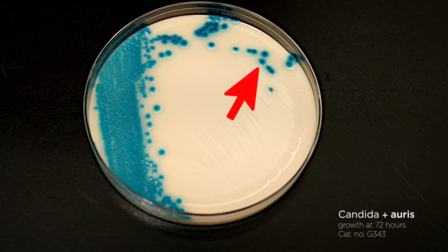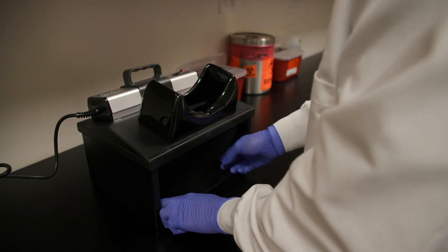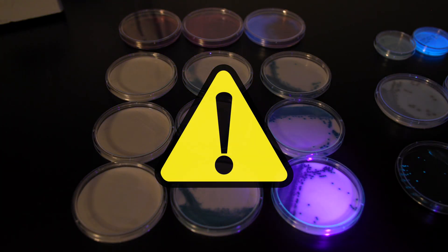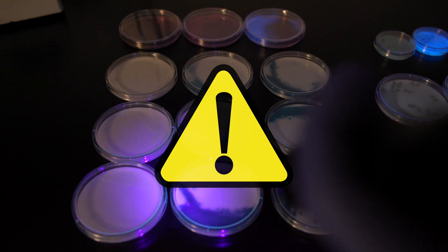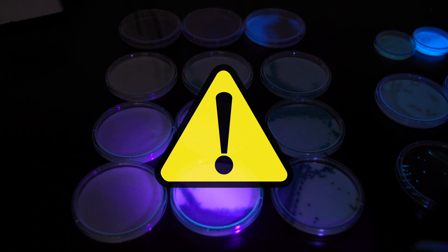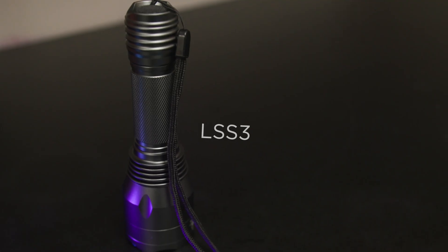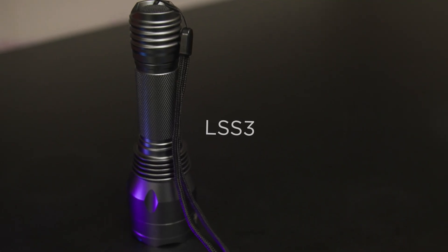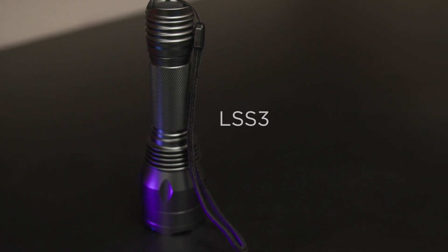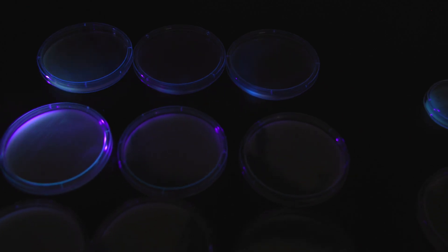Plates can be incubated for up to 72 hours. After 72 hours, plates should be discarded. Caution: there are many cheaper UV handheld flashlights available on the internet. We have tested most of them in our laboratory and found all of them not to be adequate for microbiological purposes. The one exception is the one shown here, which is our catalog number LSS3. All of the others, although cheaper, are of low wattage and will not produce a UV light of adequate intensity and the correct wavelength to reliably detect colony fluorescence.